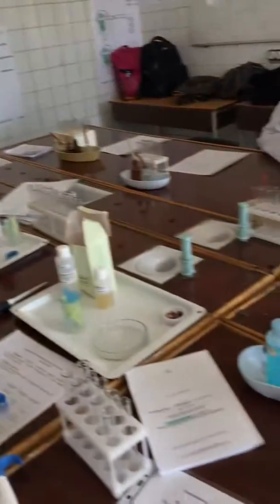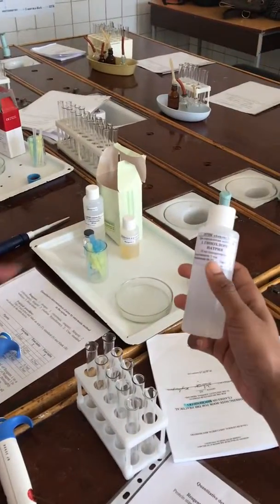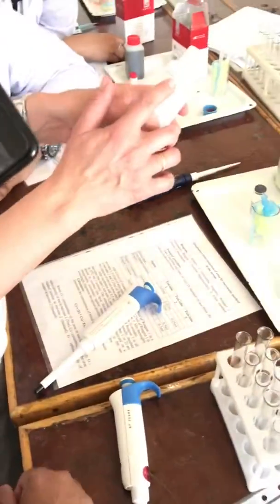Concentration of urea: 10 millimole per liter. Ma'am, it is not written — reagent number three. It is reagent number three. Reagent number two.